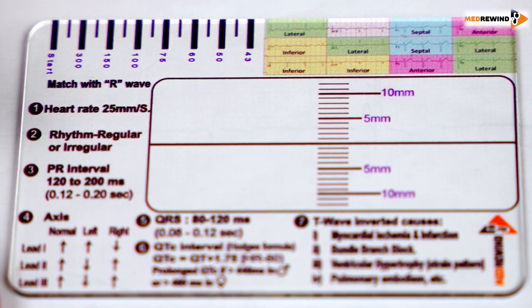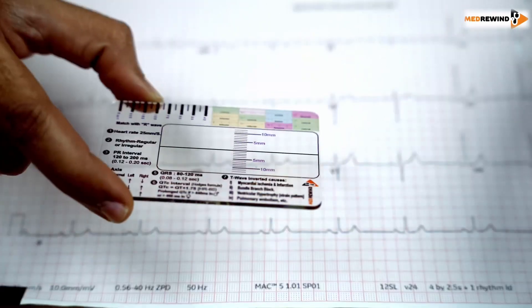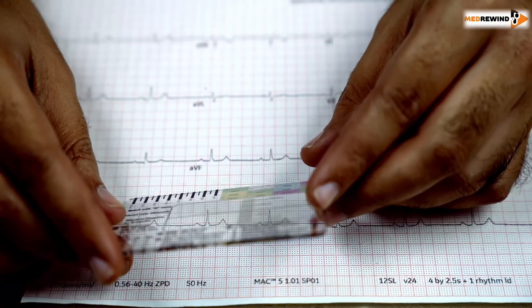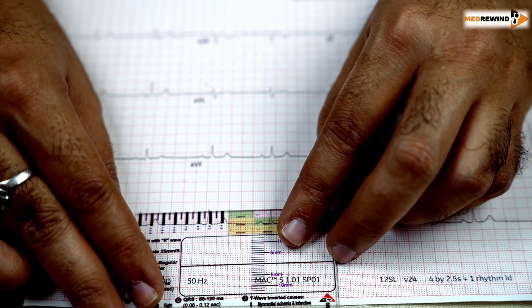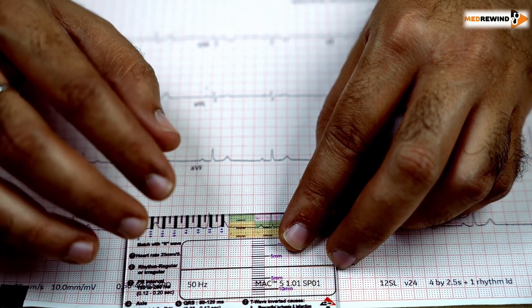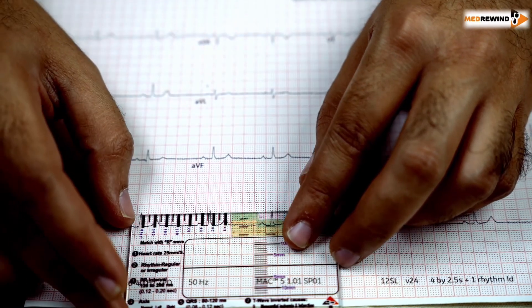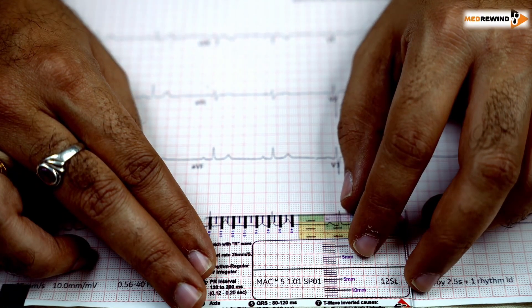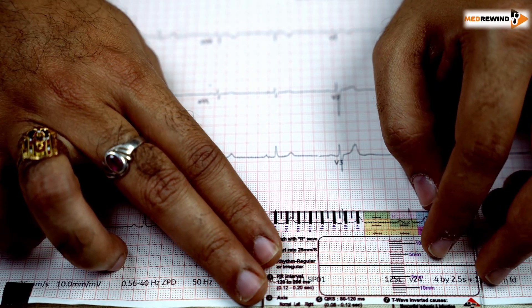This is how we can simplify the ECG and easily measure what is going on. Now let us discuss the ECG ruler on an actual ECG. First, match the R wave with the start complex and see where the second R wave is coming — it is something close to 50, so the heart rate is between 50 to 55, around 53. For Step 2, assessing the rhythm: you match it again and see whether it is in the same place — the rhythm is almost regular.